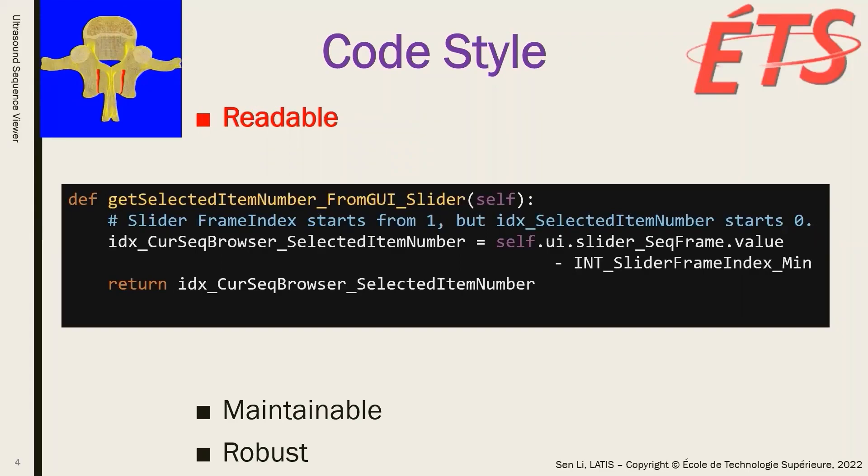Here's an example function, in which we ask from the slider in the user interface, for the index of the current selected image of the ultrasound sequence.